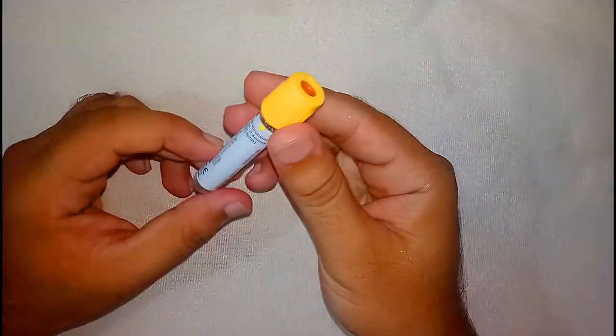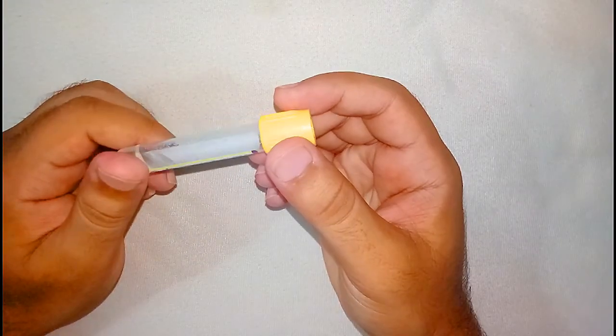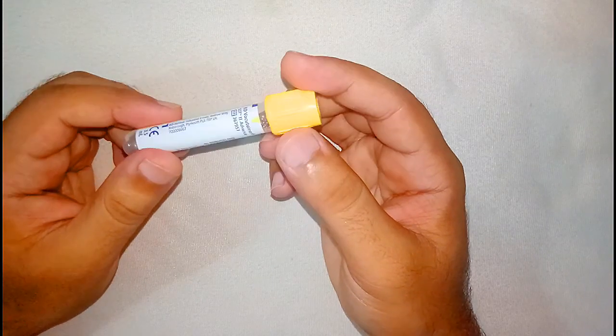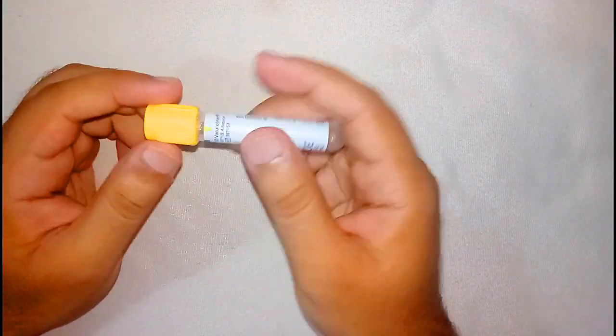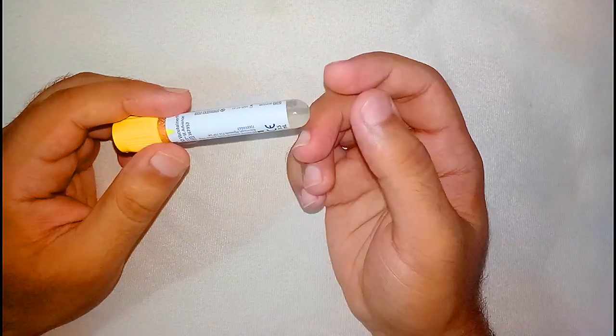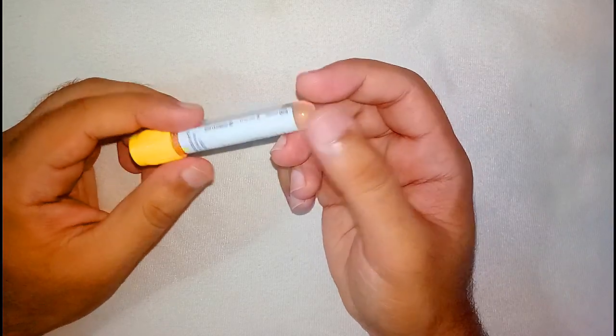So whenever you see this yellow cap, you should understand that this is a serum vial, and only those tests which I have already mentioned—viral markers, LFTs, and RFTs—are routinely done on the serum.